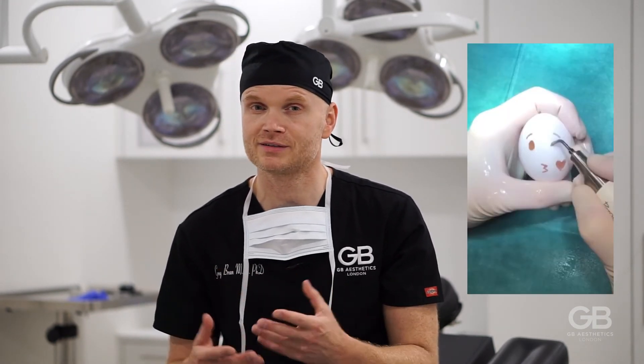This is the reason why patients suffer from less swelling, pain, and bruising after their surgery. And once you get the hang of it and you have an extra egg left, you start getting fancy and show off a little bit — just for educational purposes, really. Thank you.